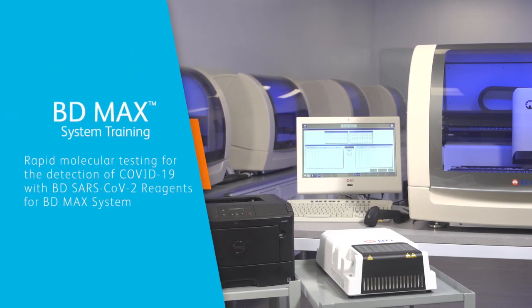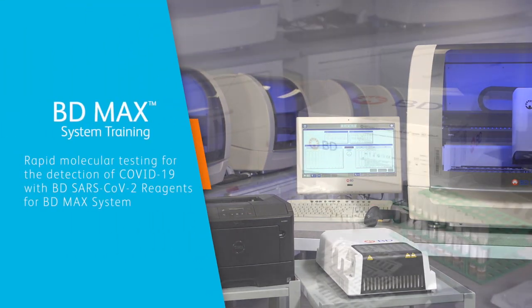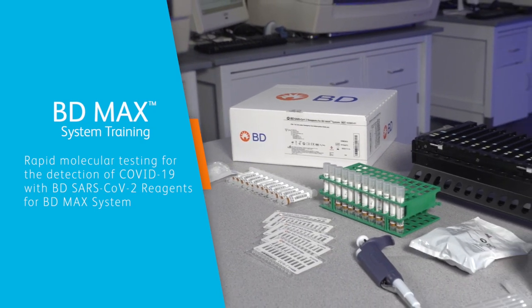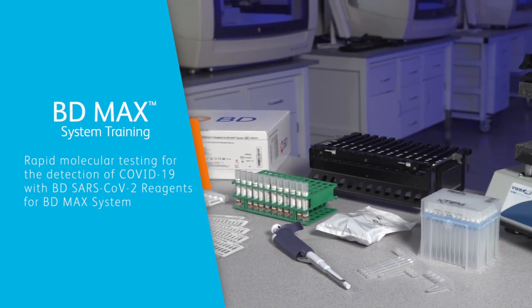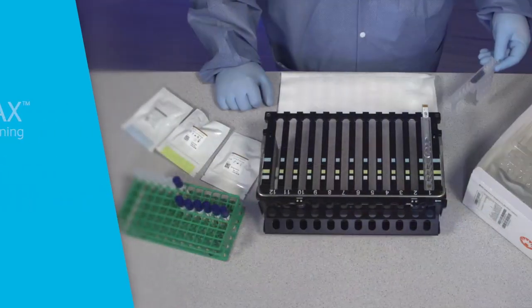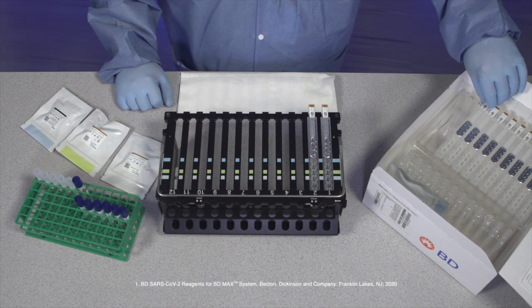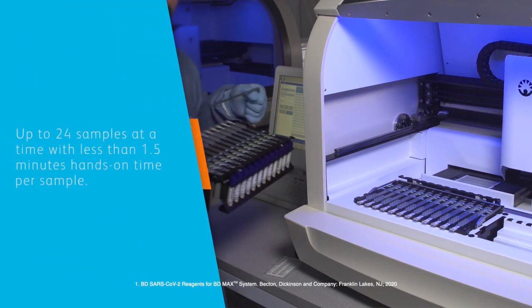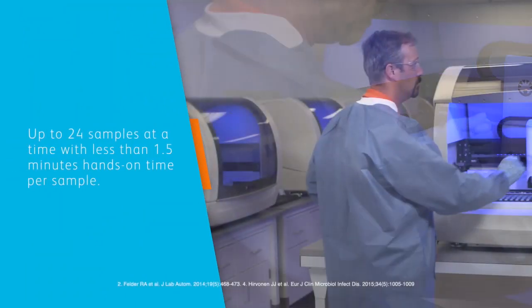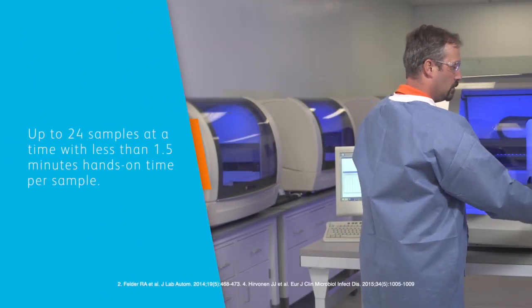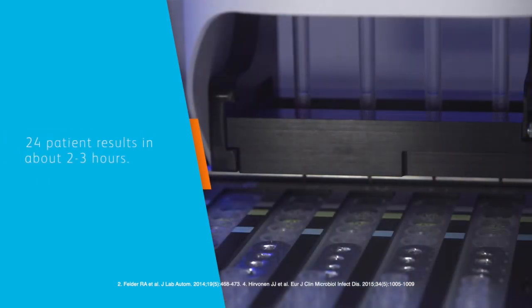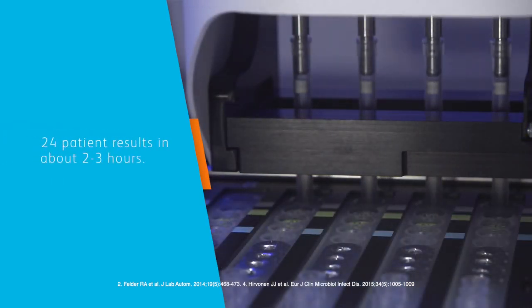Welcome to the training video on how to set up the BD-MAX SARS-CoV-2 assay on the BD-MAX system. The BD-SARS-CoV-2 reagents for BD-MAX system offers you a simplified and automated workflow with preloaded unitized reagent strips, allowing you to run up to 24 samples at a time with less than one and a half minutes hands-on time per sample. You can get 24 patient results in about two to three hours.